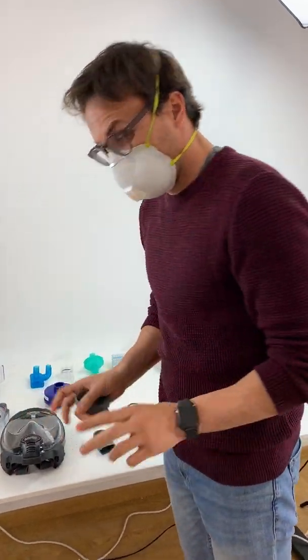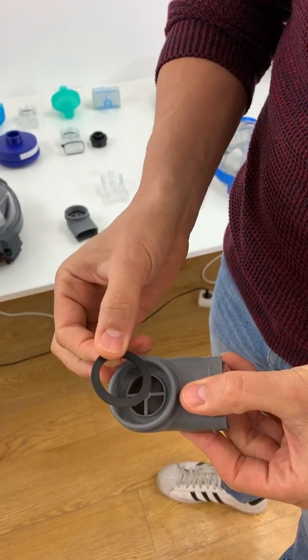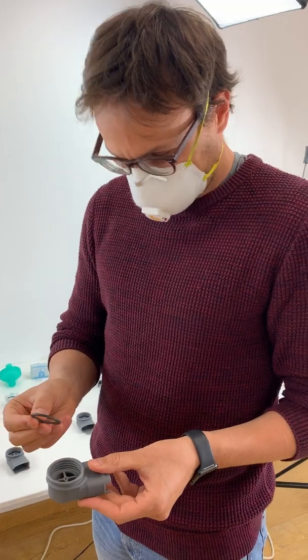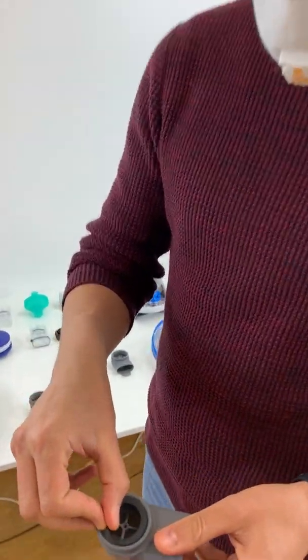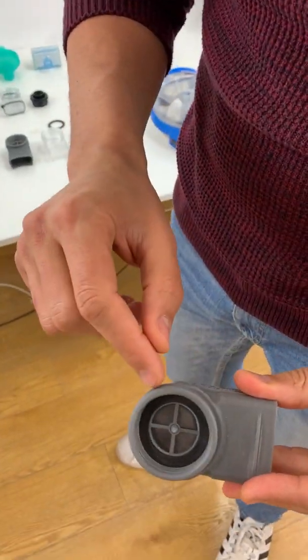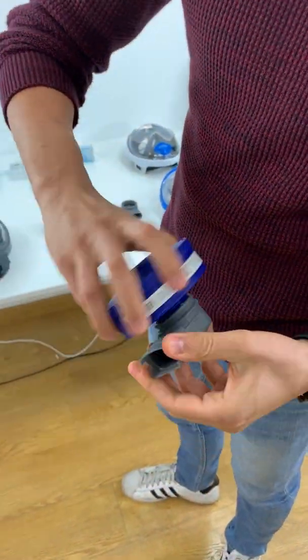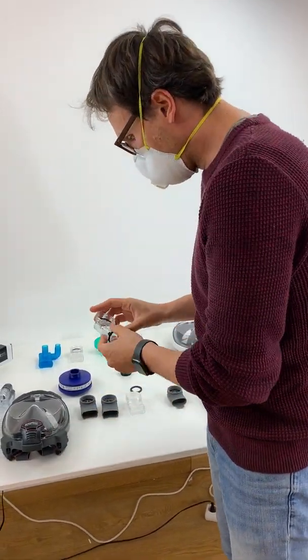The other missing component is a flat gasket of EPDM rubber, which is a little easier to source — it's a die cut. Just like the mushroom valve, we can send these out, and we will have kits available. So if you 3D print, make sure you find alternative solutions for these two pieces, or source them from us, because you want it to work properly with a sealing of the filter once it's inserted. The 3D printed product is now available mostly.